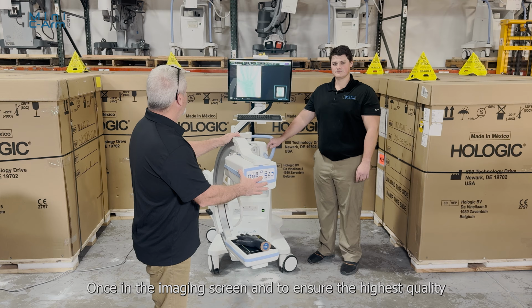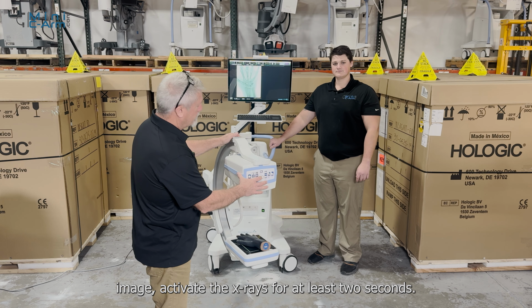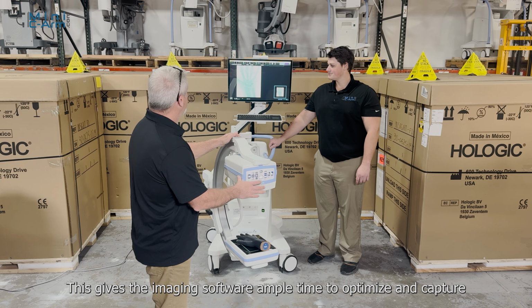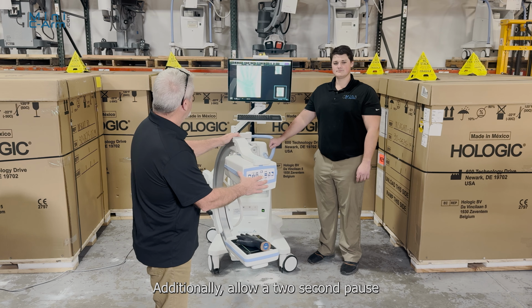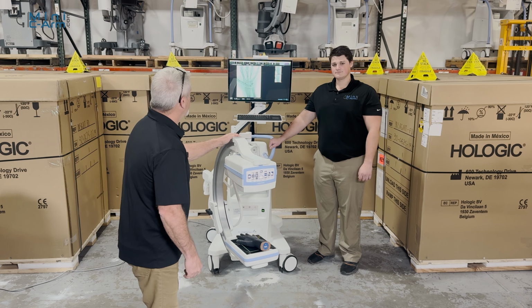Once in the imaging screen, and to ensure the highest quality image, activate the X-rays for at least 2 seconds. This gives the imaging software ample time to optimize and capture the best possible results. Additionally, allow a 2-second pause between X-rays to let the application fully reset.